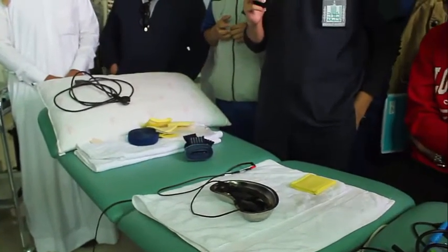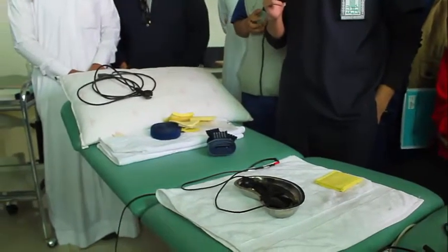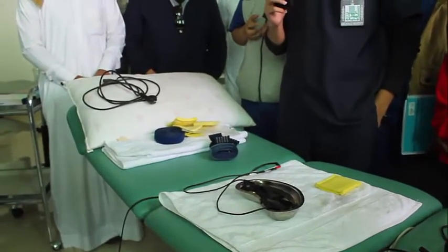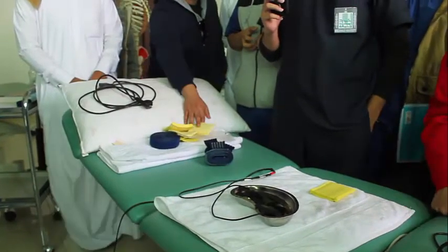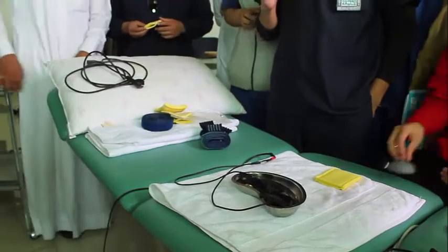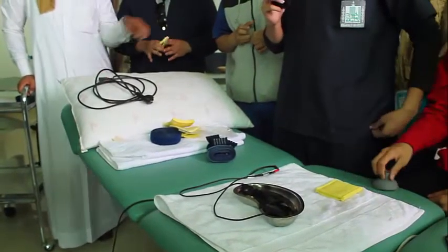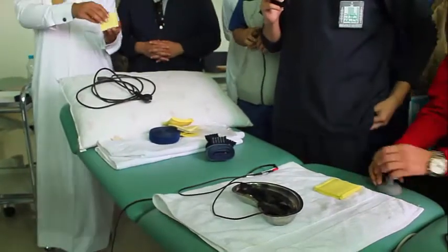There are some types of currents. When that specific current comes, that time I will tell you when to use the anode. There are different machines, different types of currents. In those cases you use anode as active. It depends upon the machine, upon the current you are using on the patient.